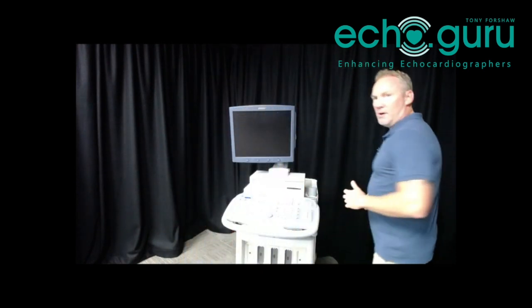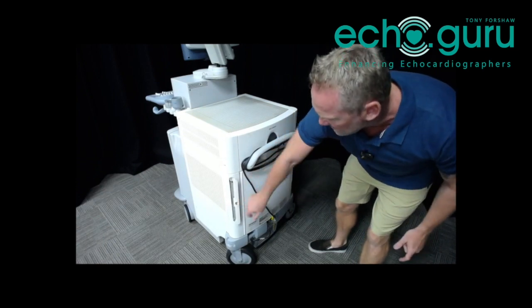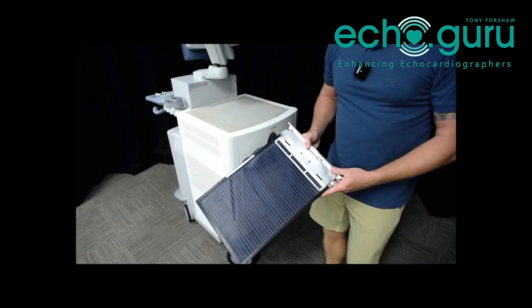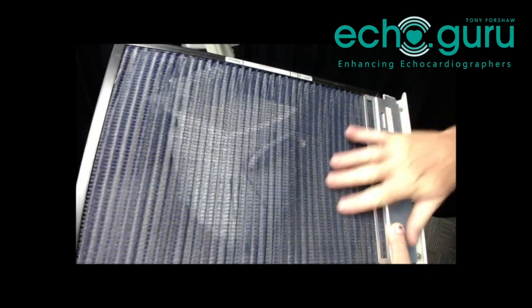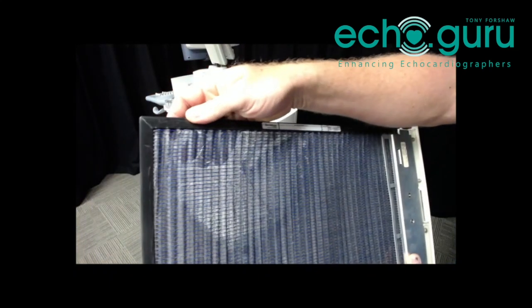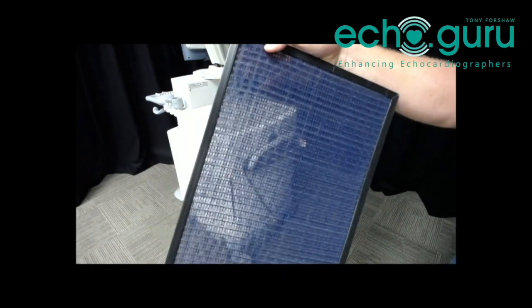First of all I want to have a look at the filters. On this machine they're around the back and we've got two filters, one on either side. We can just pull those out and inspect them, then give them a good clean. If we have a look at this one, it's actually in really good nick. We can see not a lot of dust in there, though a tiny bit is accumulating in that top corner where it's closest to the fans, but it's not too bad overall.